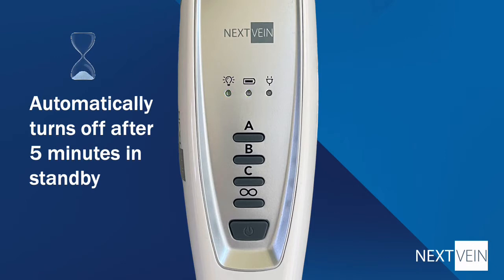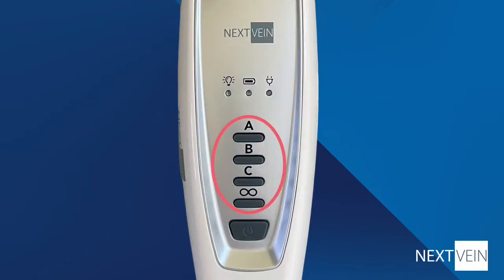Once the device is off, remember to use the long press described earlier to turn it back on. The long press is a feature that reduces the chance of the device turning on accidentally and draining the battery. We'll cover the remaining controls later in this video.